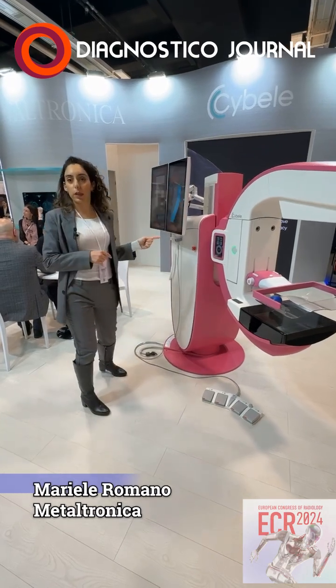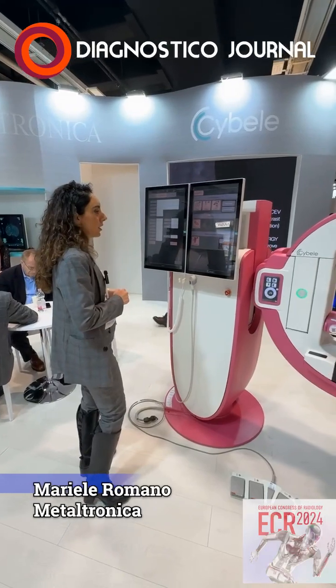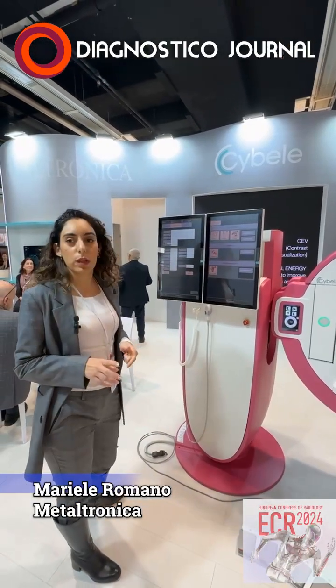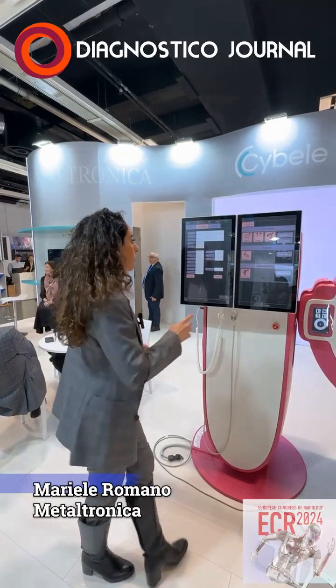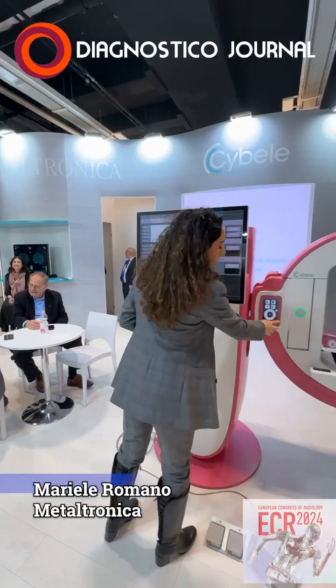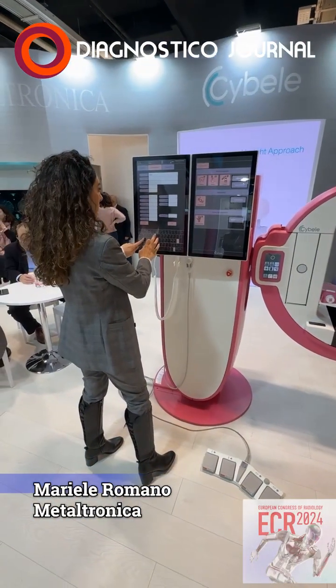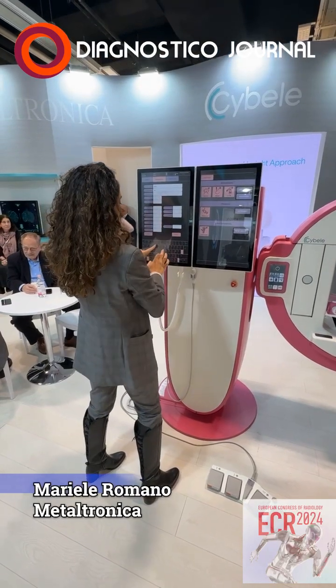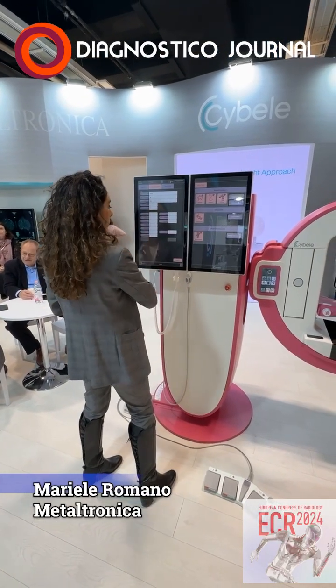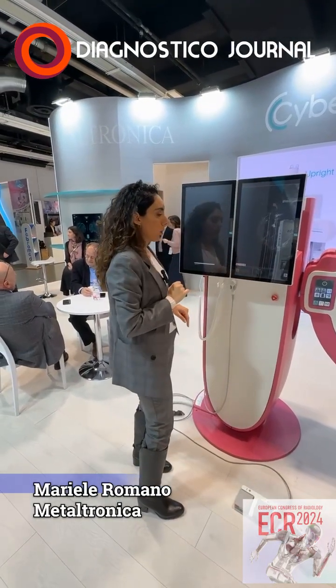So in the meantime, I open a new patient. And I will show you the concept of ultrasound, how they integrate in this workflow. So we always insert an ID, we close the service menu, we click on ultrasound, and we go to echo exam.